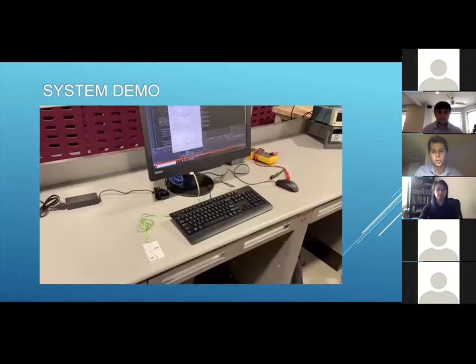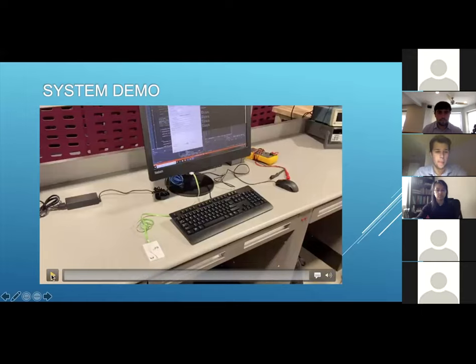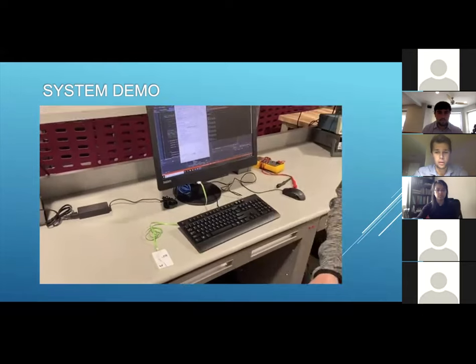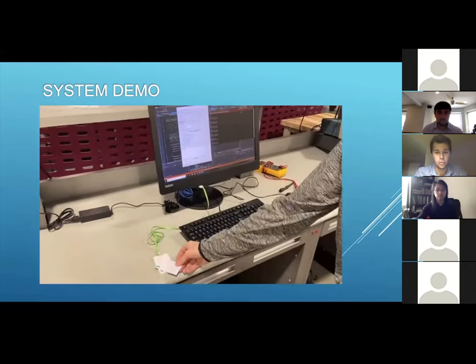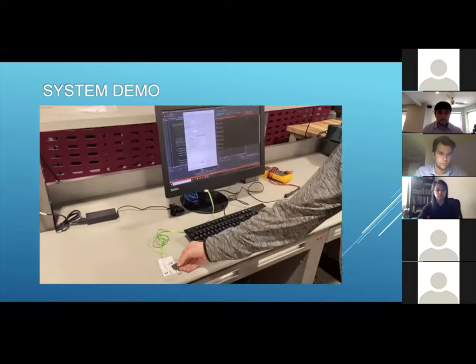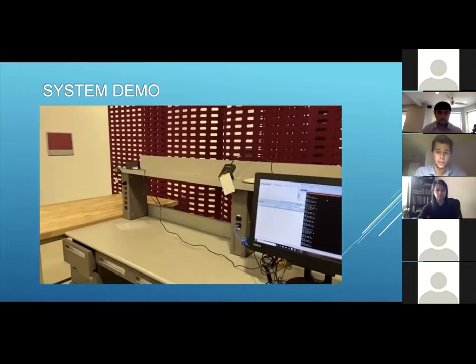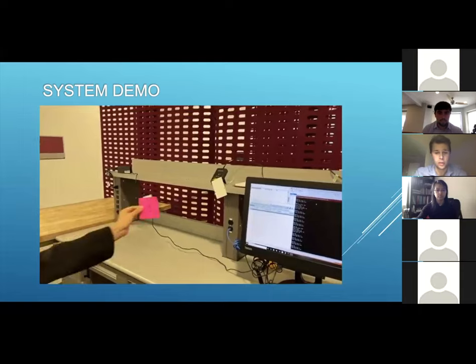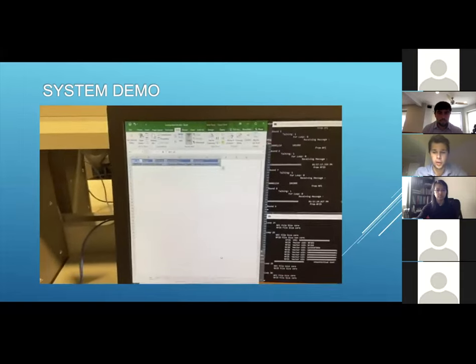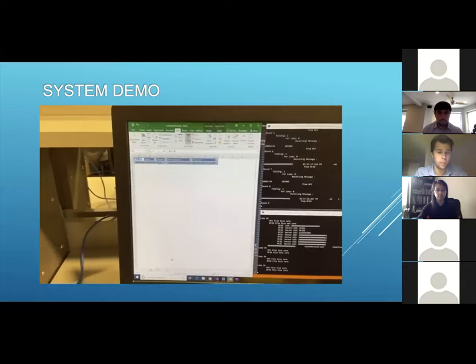So here's a glimpse of our final working system. Here's the NFC portion outlining a clinician logging into a medical device. This represents the room RFID reader picking up clinicians and patient tags in the vicinity. And here, the database and display is then updated with information from both subsystems.